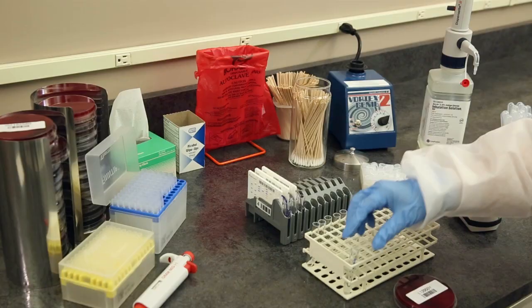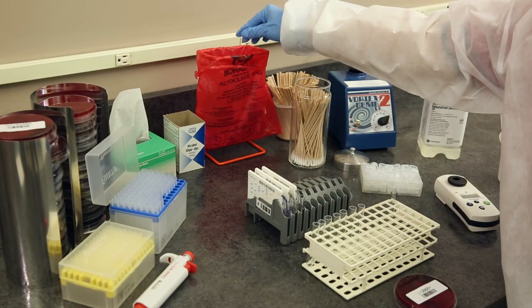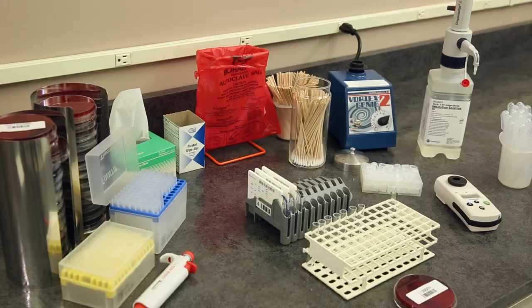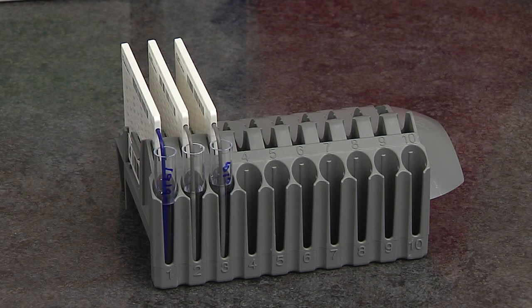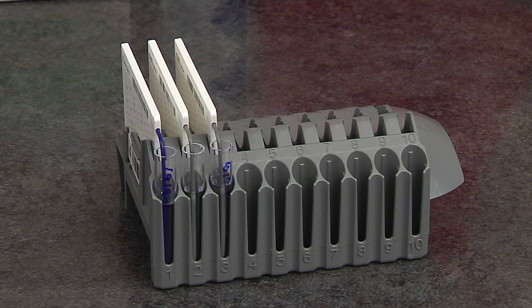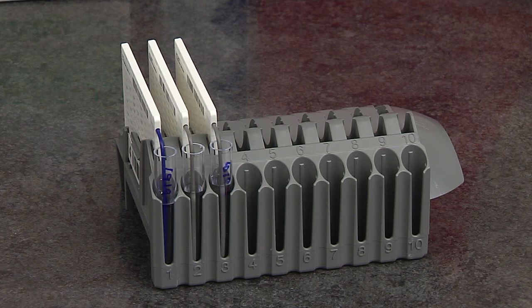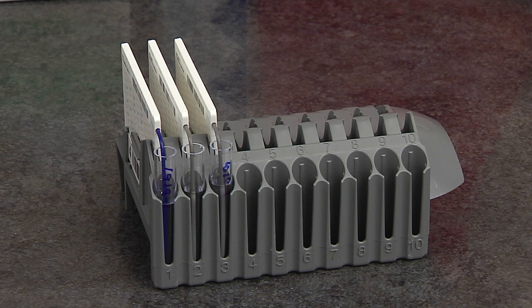Discard the remainder of the organism suspension per your laboratory procedures. After all suspensions and test cards are prepared, the cassette is ready to be placed in the instrument for the cards to be filled.